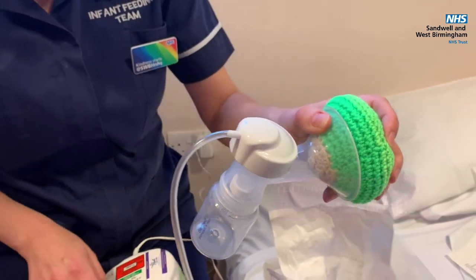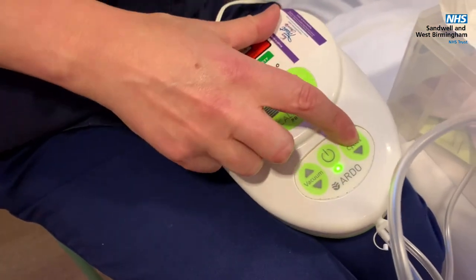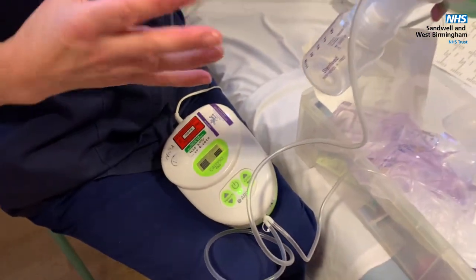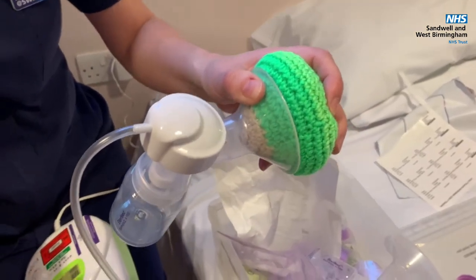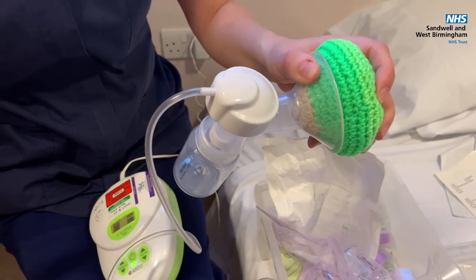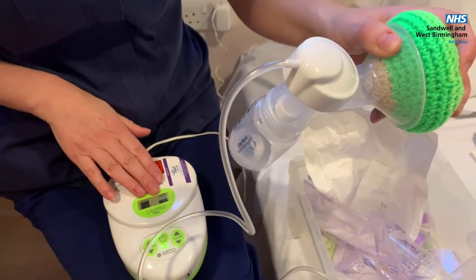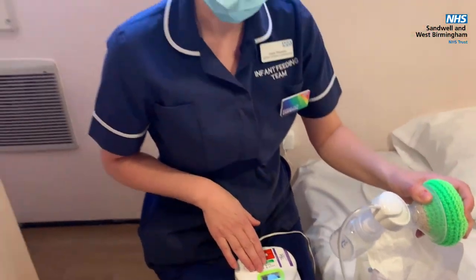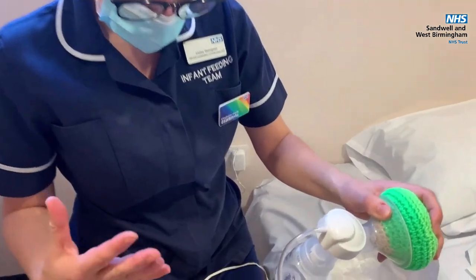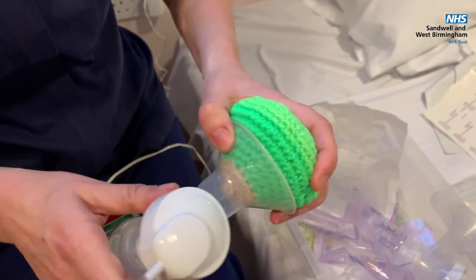The vacuum is how hard it's sucking, and the cycles is how fast it's sucking. Like I said, babies when they first feed suck quite fast and then the sucking slows down. So start off with this rapid sucking, and then as the milk starts to flow you can turn the cycle down a little bit slower. With these pumps it's about finding what suits you, so just have a fiddle around with it. As long as it's comfortable it's fine, and if you have any problems speak to us from the feeding team.